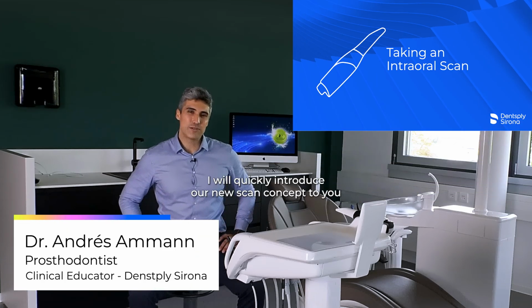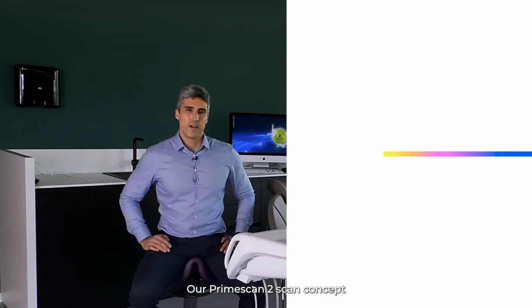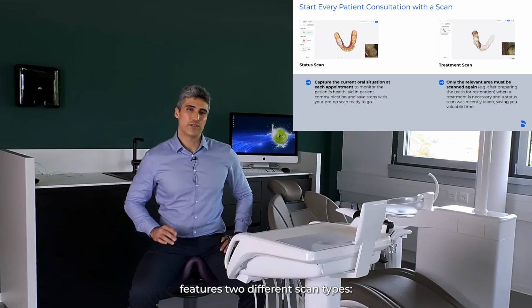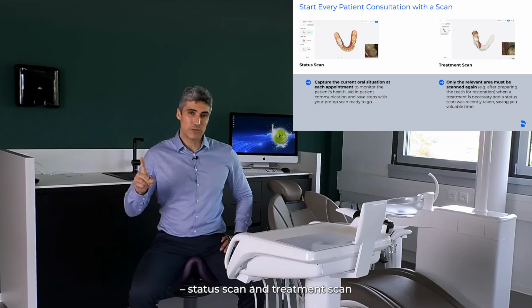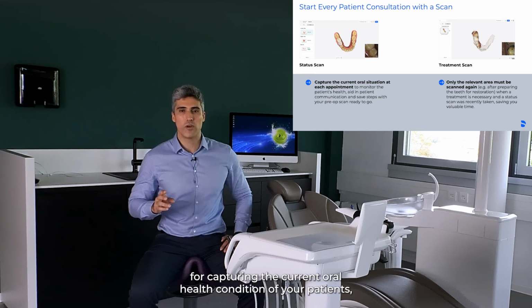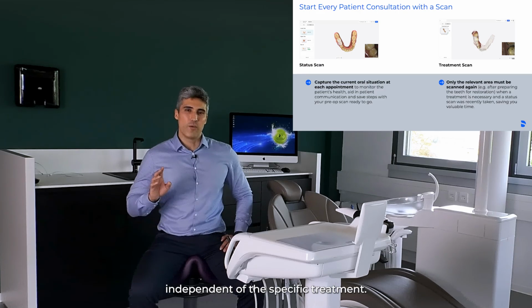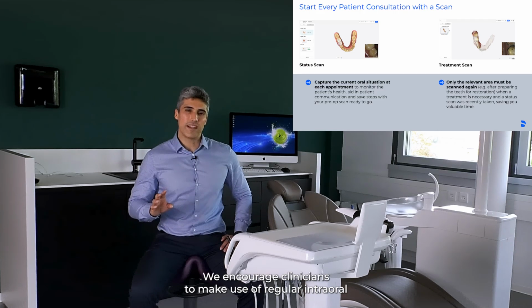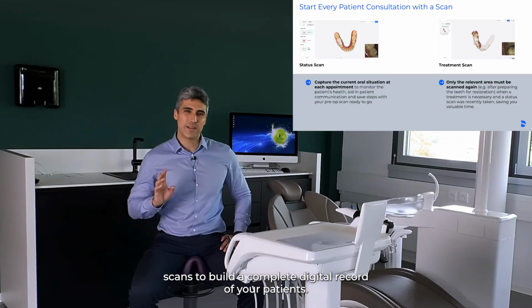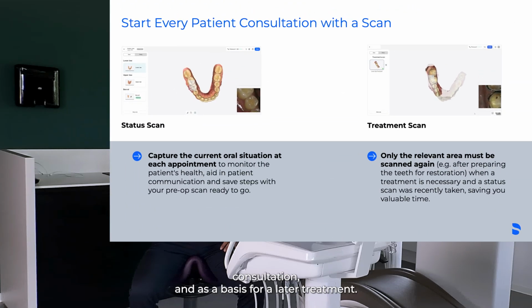I will quickly introduce our new scan concept to you before moving to the scores. For Primescan 2, the scan concept features two different scan types, status scan and treatment scan. The main idea behind the status scan is having a dedicated workflow for capturing the current oral health condition of your patients, independent of a specific treatment. We encourage clinicians to make use of regular intraoral scans to build a complete digital record of your patient. The status scan can be used for effective patient communication, consultation, and basis for a later treatment.